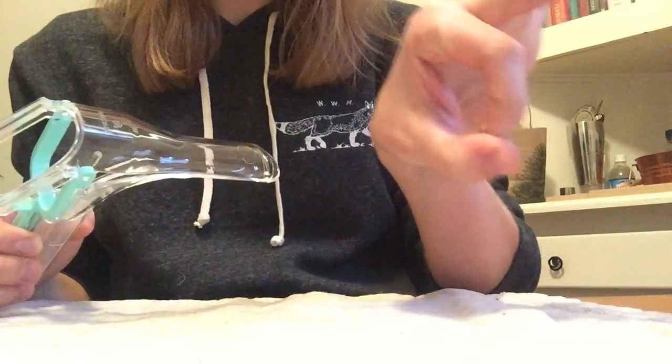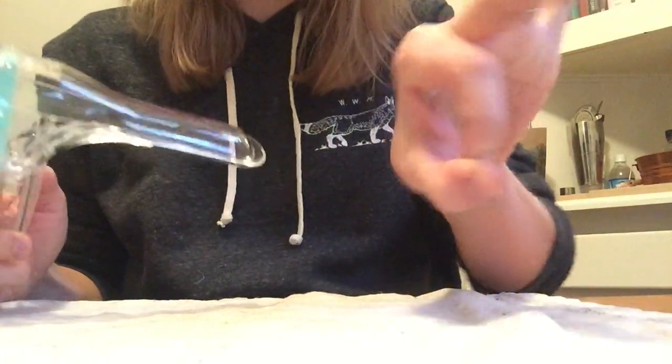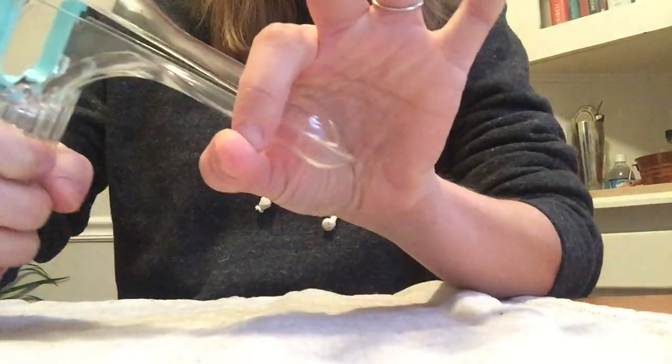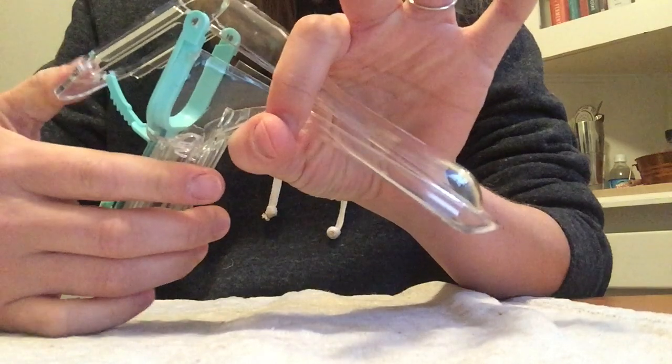Okay, so if we pretend that my fingers here are the opening to your vagina, in a speculum exam, we'll take the speculum, place it into the vagina, and then we'll open it.